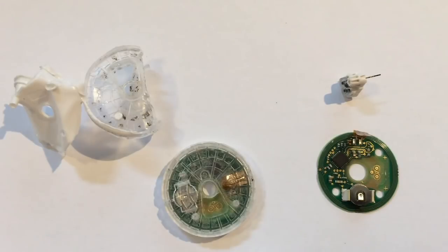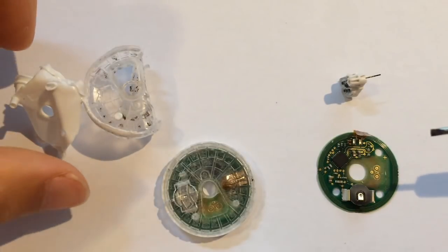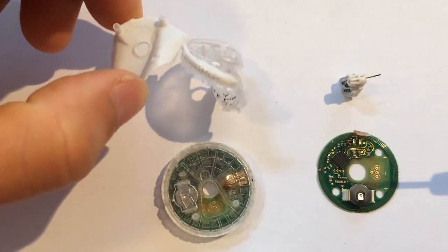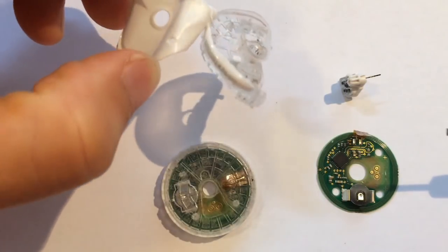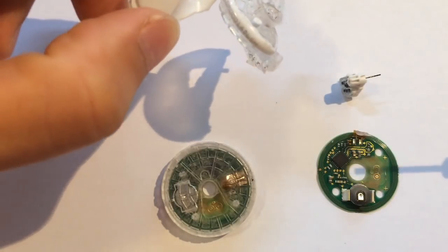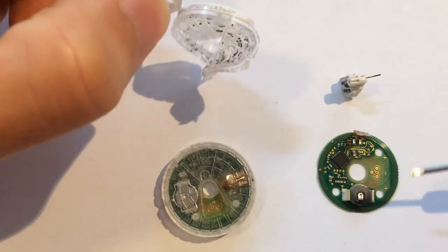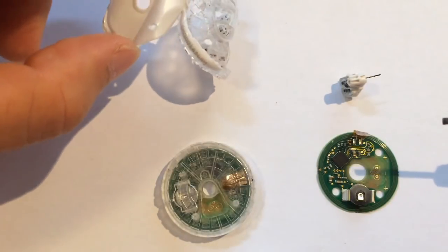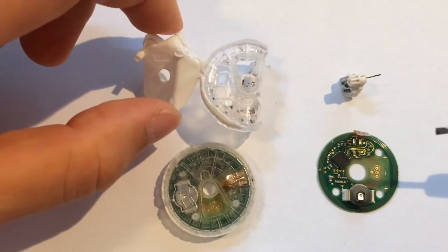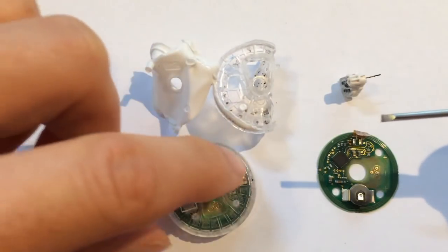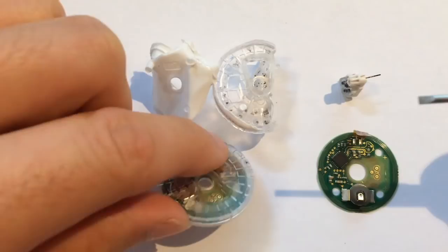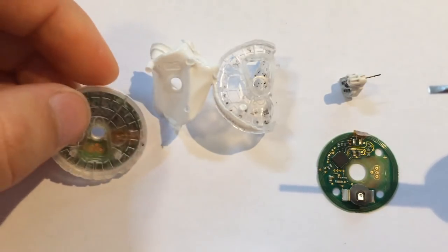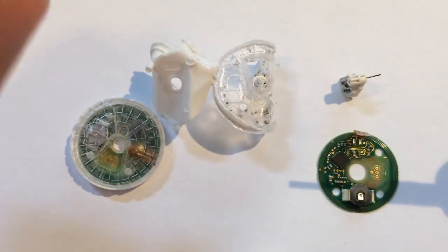Here I've got two. One I've already opened up. They're quite hard to get open. I had to really cut it open and then pry it, just brute force ripped it apart. So the case is completely destroyed on one of them. And this is a used but intact sensor, just with the adhesive pad torn off.